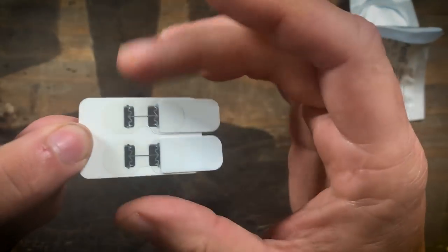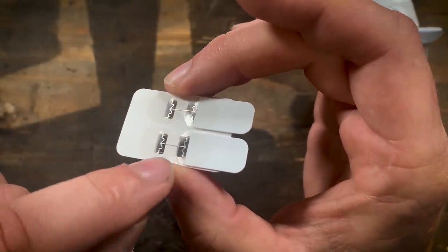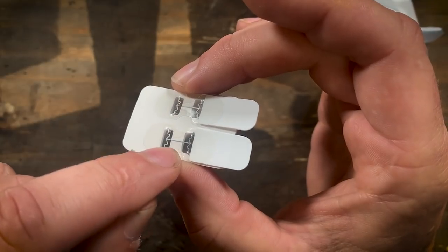You can pull these off and as you can see right here is like little micro staples here, that's where a lot of the strength comes on this bad boy right here.